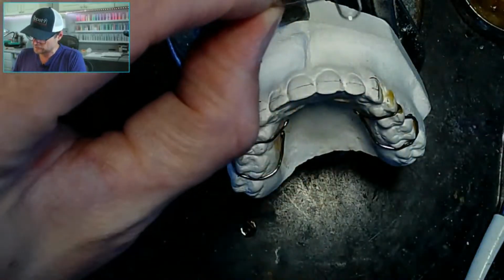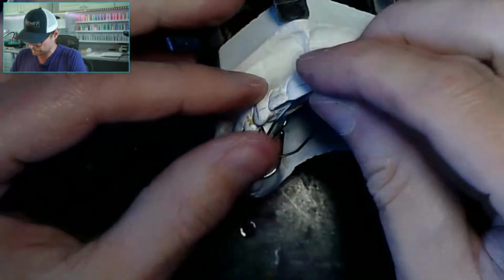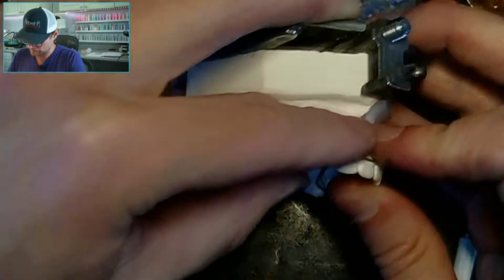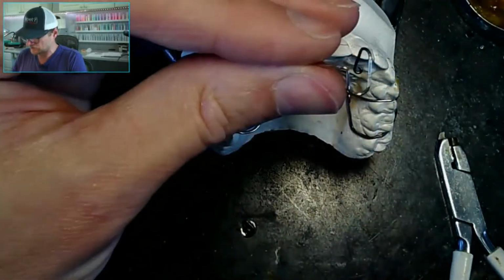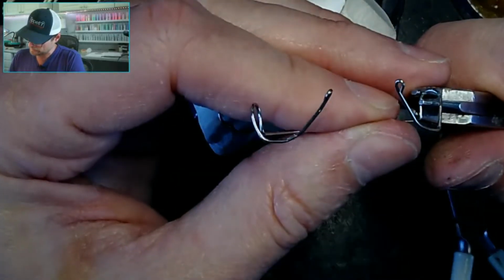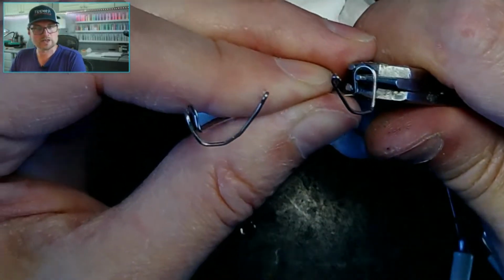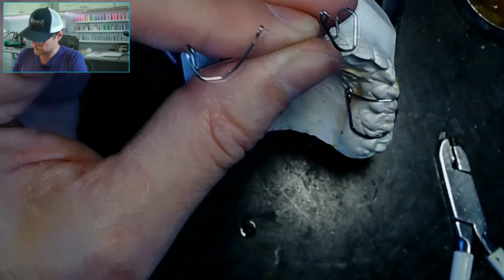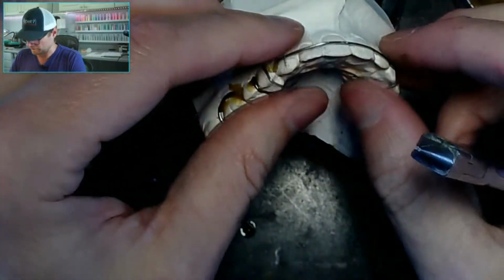I'd want to see, I'm looking at the vertical of this one compared to the vertical of this one. This one is just a tall loop. I guess I didn't adjust it like the other one. So let me see if I can just curl this loop down a little bit right here. What I did is I took my 3-prong and put it right at this juncture, and it kind of curved it down. Now what that's going to do is actually make this loop skinny, so I kind of got to open it right back up.